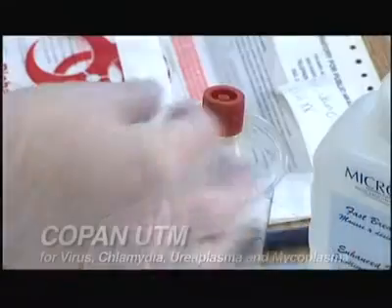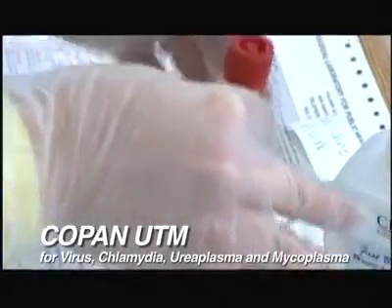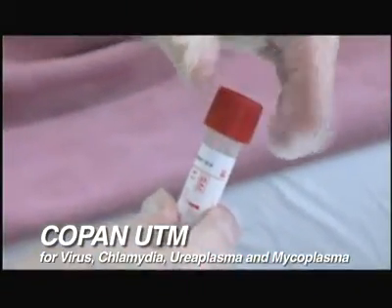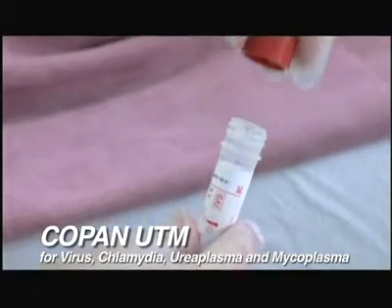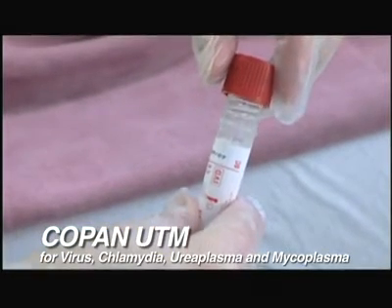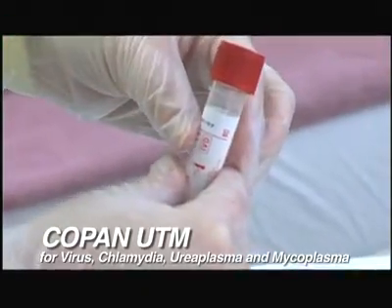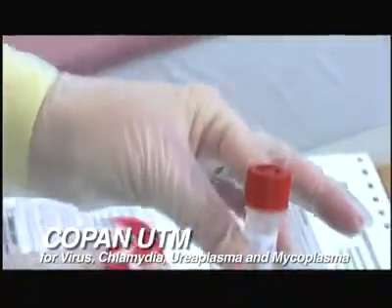This next section describes the universal transport medium for the collection of respiratory viruses. This is the universal transport medium container, which is available from our current suppliers, Copan. This medium can be used for collection of samples from a number of different respiratory and non-respiratory sources for respiratory viruses, herpes, chlamydia, ureaplasma, and mycoplasma.